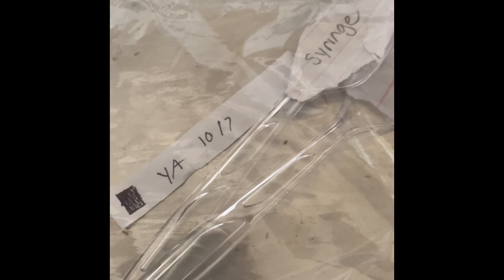This one is shaded, meaning it has gone through sterilization and the steam, meaning these instruments — the syringe and needle holders — are ready for the next use. But sometimes when they come out of the autoclave they may be a little damp, so the best thing to do is just set them out and let them dry. After that, when you come back, they should be dried and then you can put them up. And that should be it.